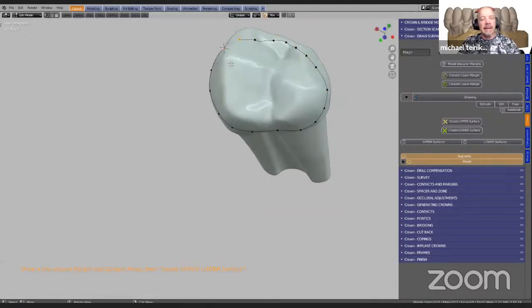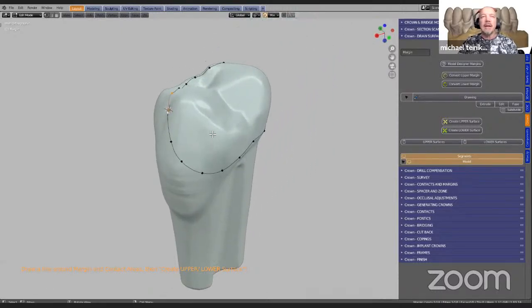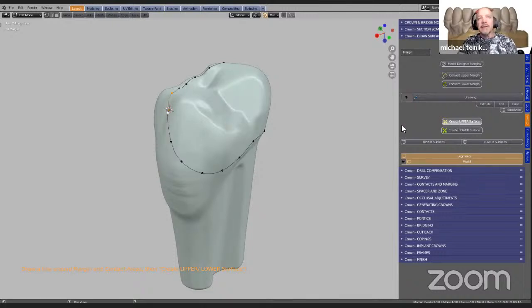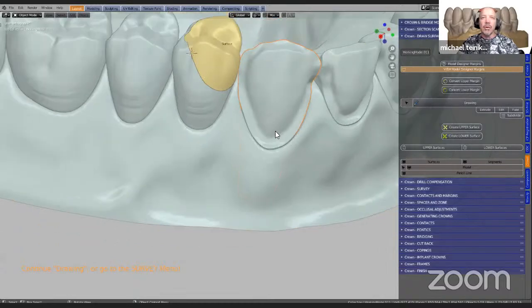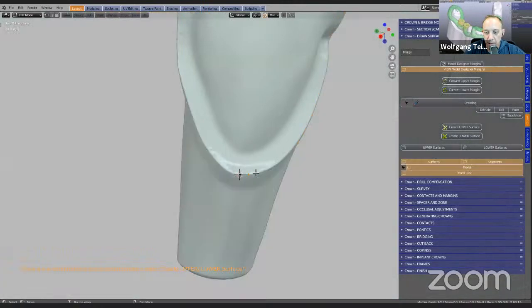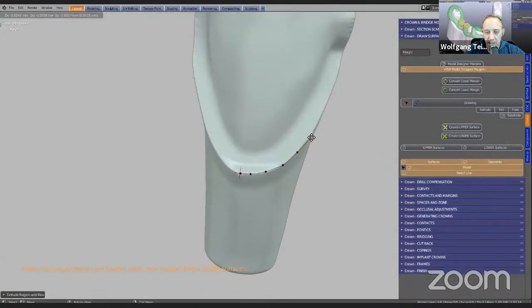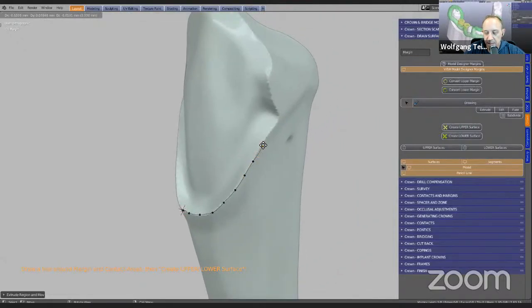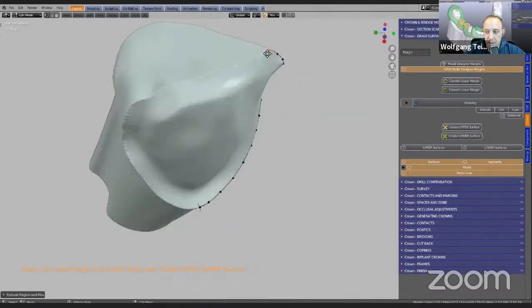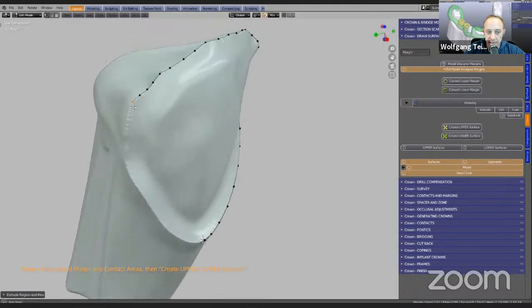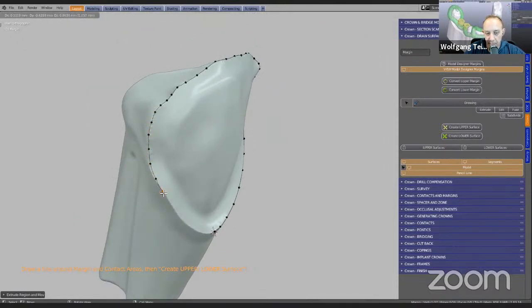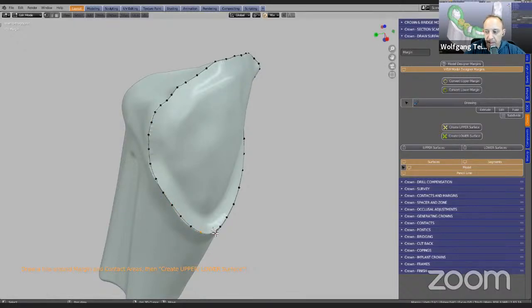Now, we know when we make veneers even in the analog way, contacts are very difficult to get to fit correctly. So what we're doing here is making different surfaces. Wolf, can you talk through this as well? Yeah, so like Michael said, we all know in the laboratory that the contacts are very important and they will be included in the surveying process. Later on we have the ability to adjust the contacts as far as offsets go. So if your cases are always very tight fitting in the contacts, you can offset the contacts — making those little contact models slightly bigger before we do the Boolean difference, cutting the contact in.